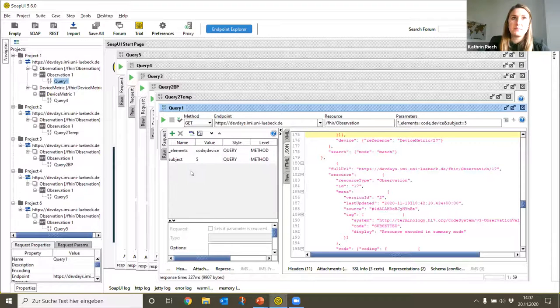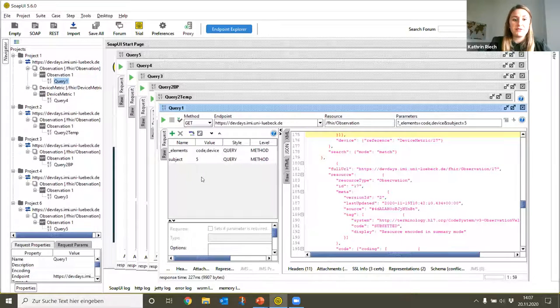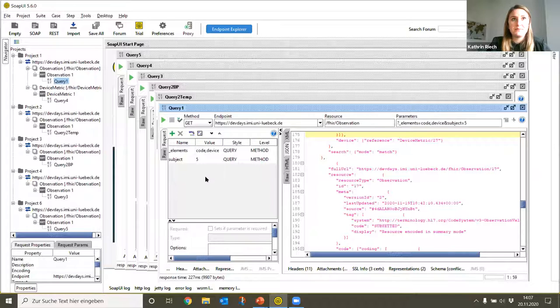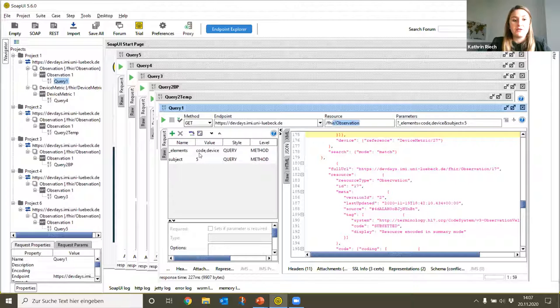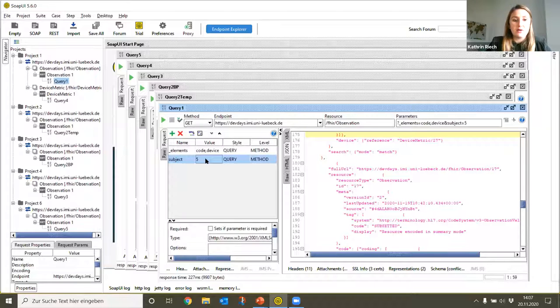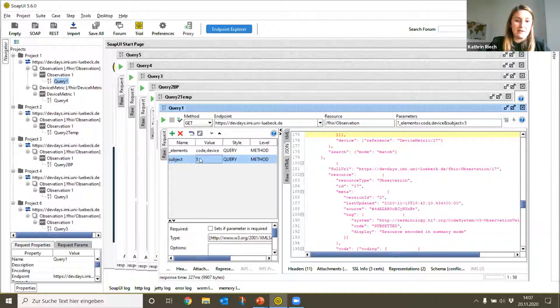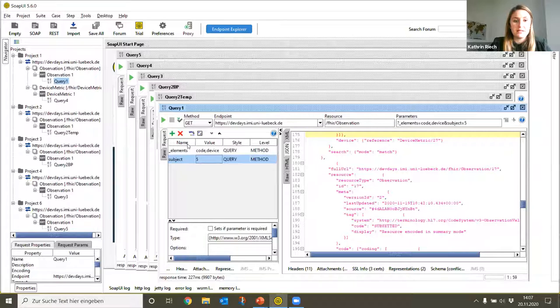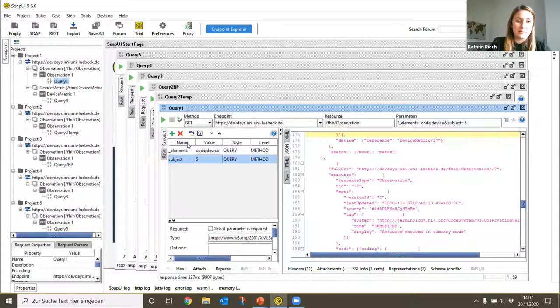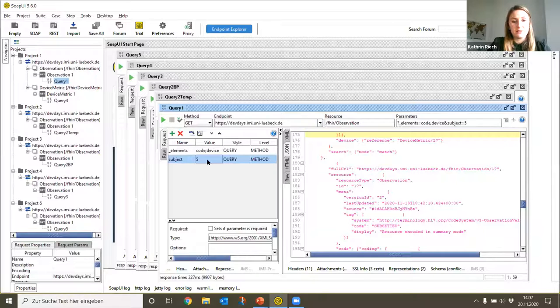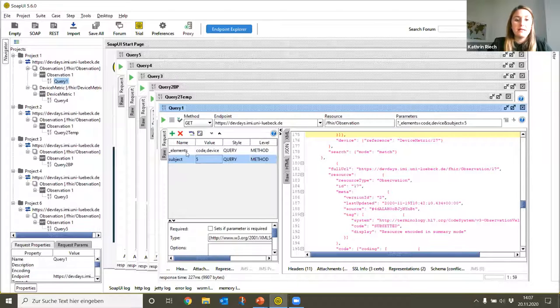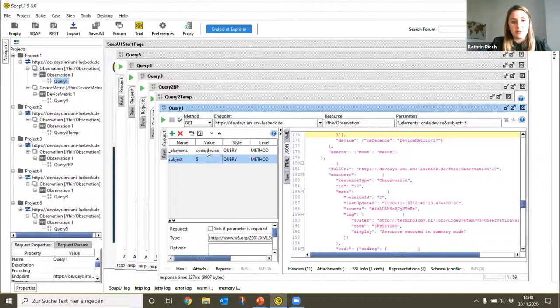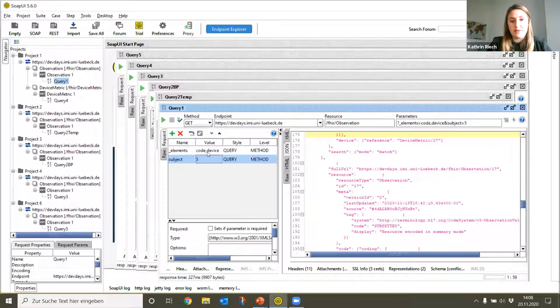In our first query, as Tobias mentioned, we want to know which measurements are currently available for our patient. To retrieve this data we are using the FHIR Observation resource. First we're going to specify for which patient we want to know something about the measurements. The resource of our patient Pauline has the ID 5, so the subject reference should equal the value 5. The attributes and search parameters will be added in the name column and the values they should equal to in the value column. In this query we are interested in the code and the device attribute, and we can specify with underscore elements that only these attributes should be shown in the output.